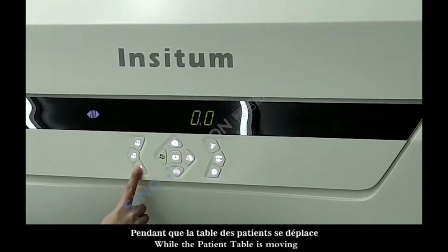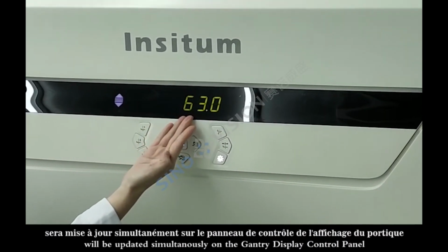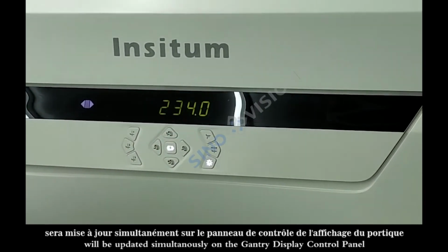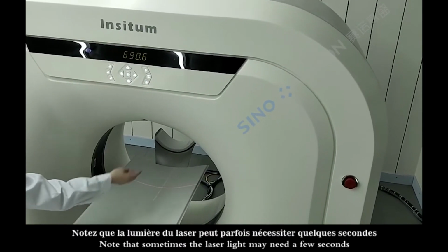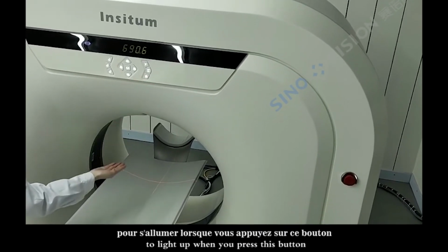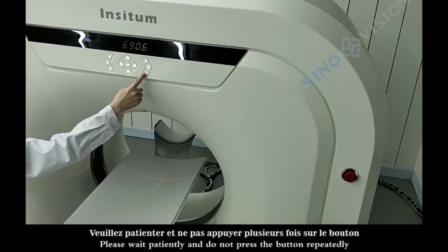While the patient table is moving, the horizontal position or height of the table will be updated simultaneously on the gantry display control panel. This is the laser alignment light button. The laser is positioning plane. Note that sometimes the laser light may need a few seconds to light up when you press this button. Please wait patiently and do not press the button repeatedly.